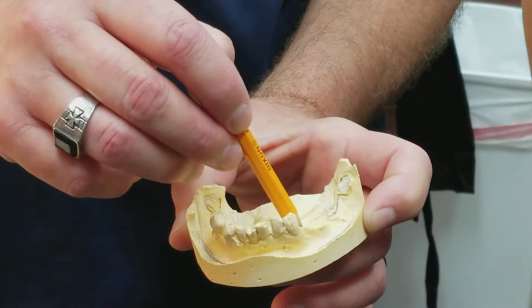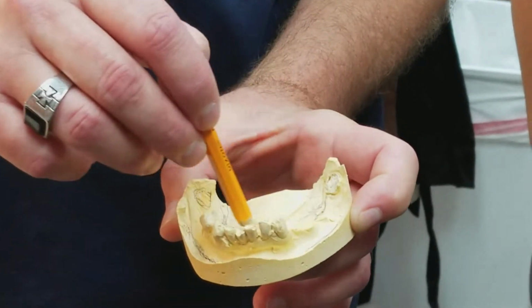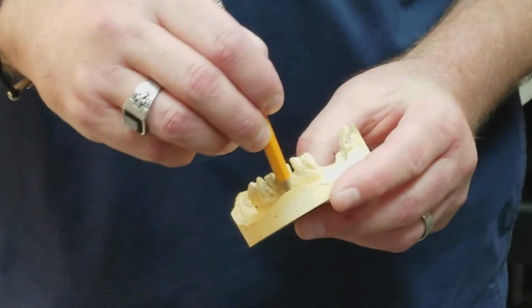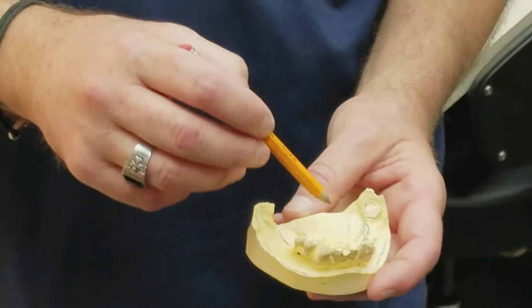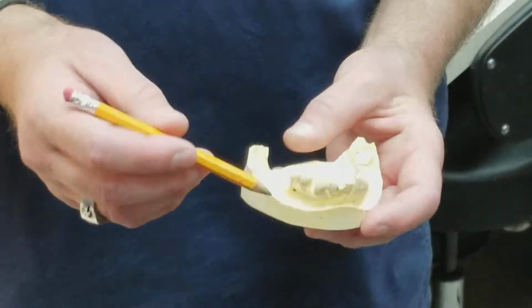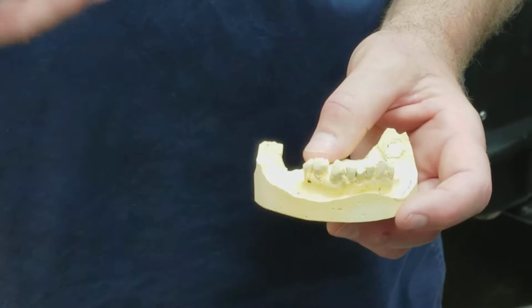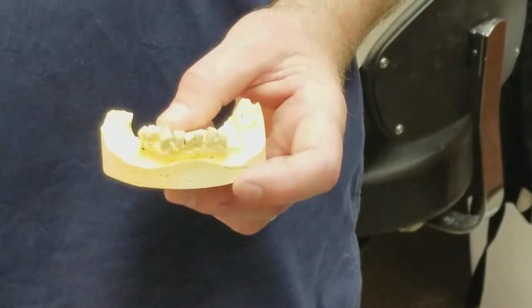But it has to be really deep down in there, and this is called the lingual sulcus. Okay, and so basically you need all that landmark right there. You can cut down on doing a lot of custom trays. It'd be nice, and I'll show you out there how to do some alginates. But that's basically what I'm looking for in edentulous areas. And then you want to try to get your buccal frenum attachments, if they're very prominent. If not there, that's fine. But you're going to need to look in the patient and know what you're seeing and what you're taking.